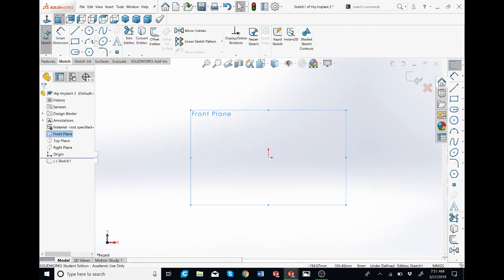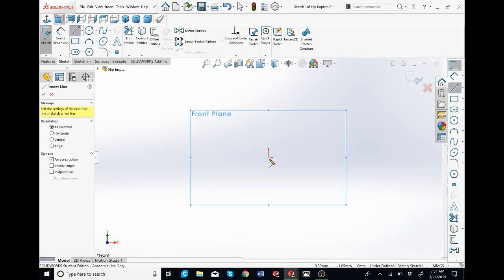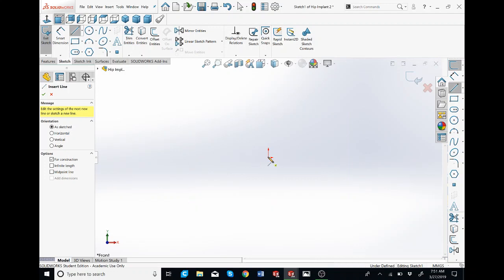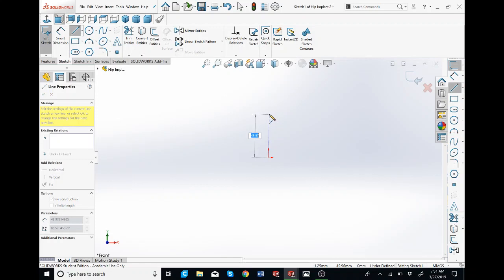First off, we're going to make a center line. I'm going to hover my mouse over the sketch bar over here — center line. I'm going to go to the origin. You can see that my cursor has a yellow box, which shows that it attaches to the origin. You can see if I move away there's no yellow box. All you want is that vertical relation, which you will see as another yellow box. I'm going to press escape.